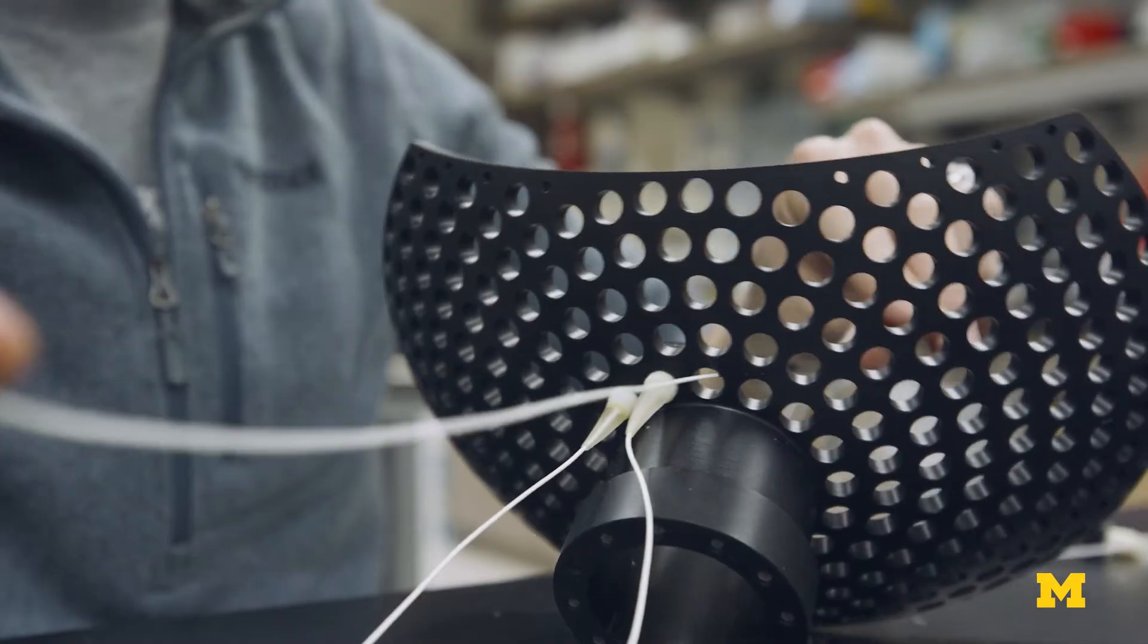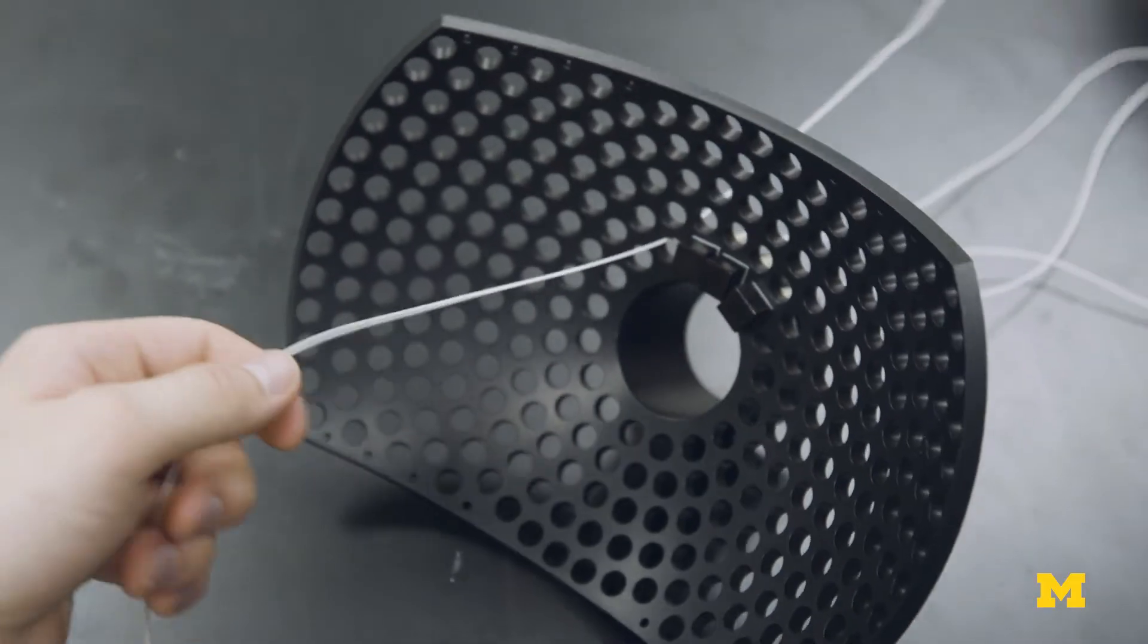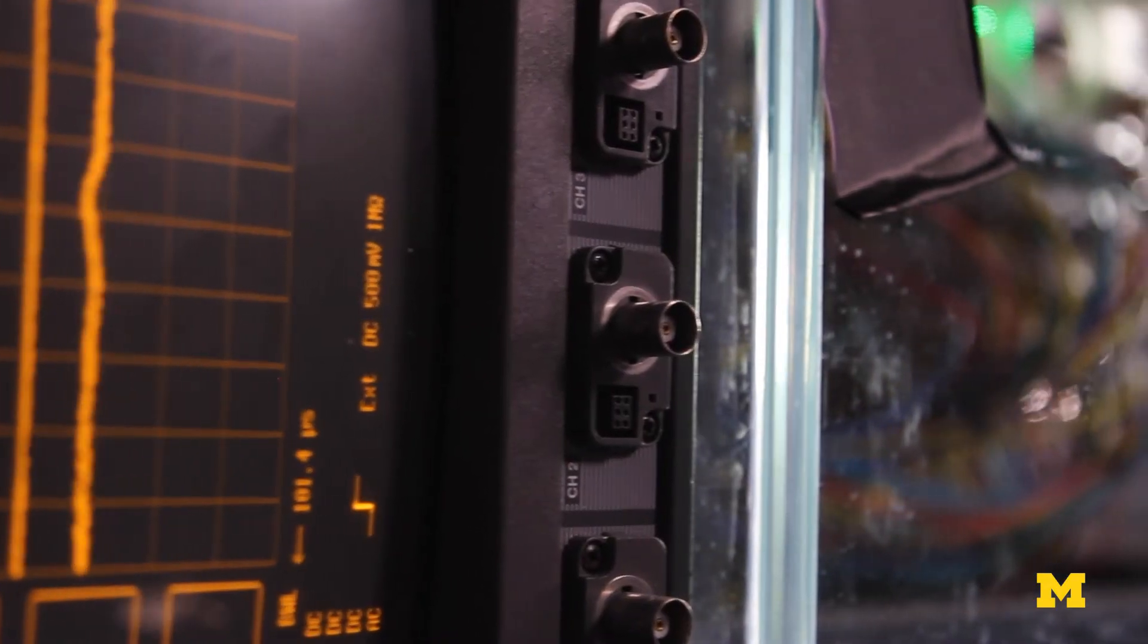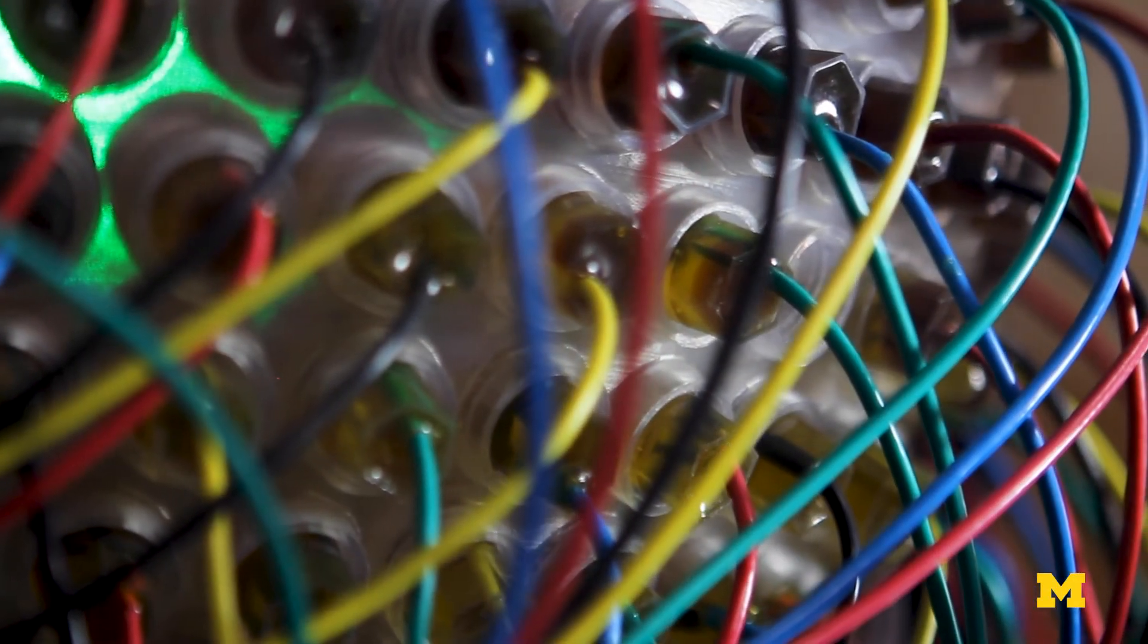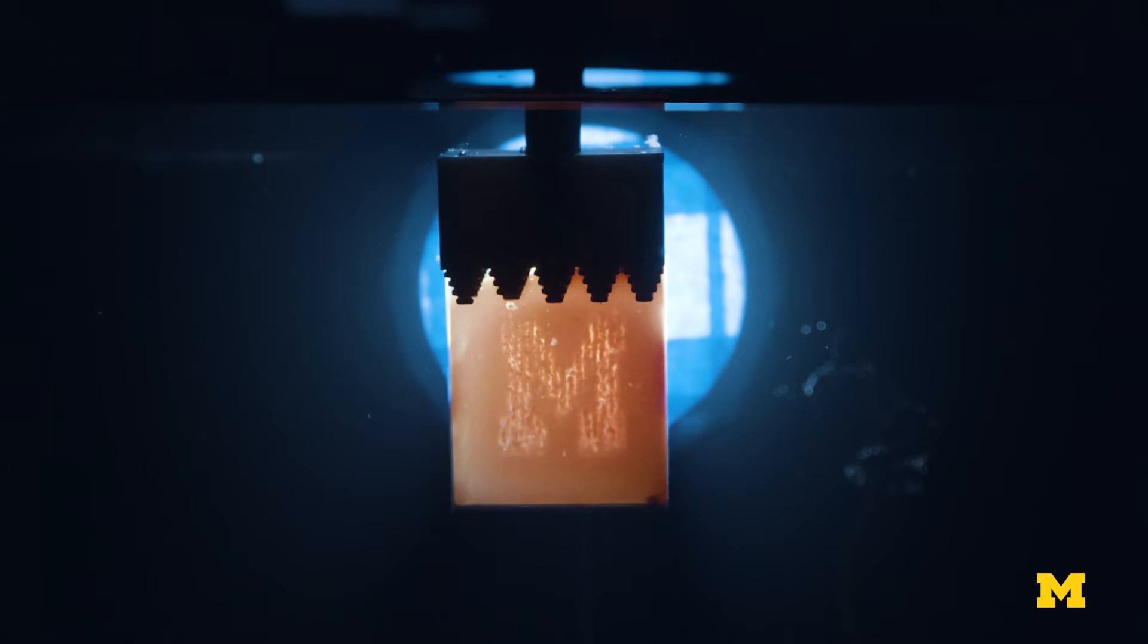After we discovered the histotripsy phenomenon, we spent a lot of effort in the lab to actually build specialized equipment and instrumentation so that we can really use it in a clinical setting.